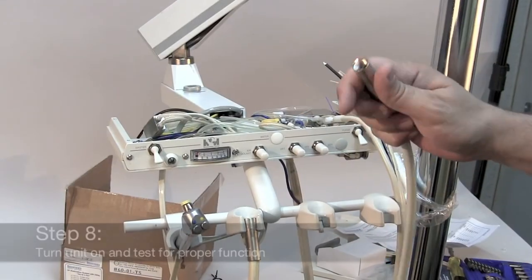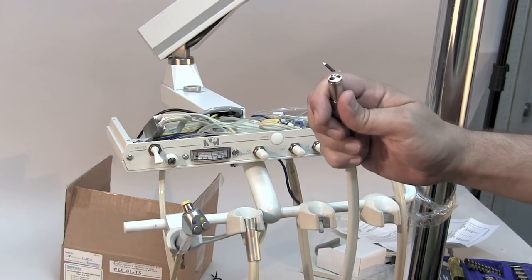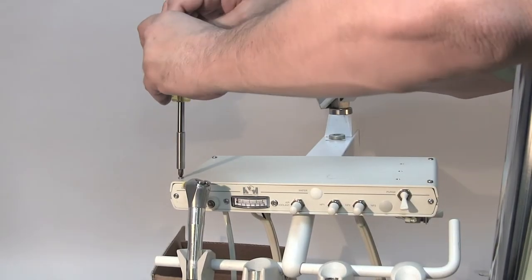Now that we've gotten everything attached, turn on the unit and test to see that everything is working. Put the cover back on and enjoy your new handpiece illumination system!